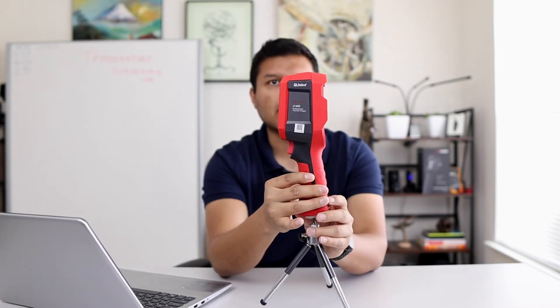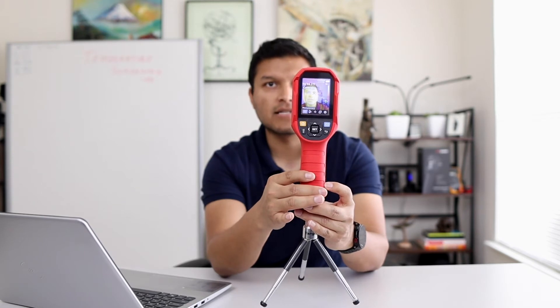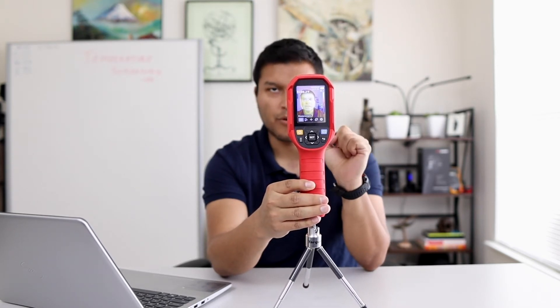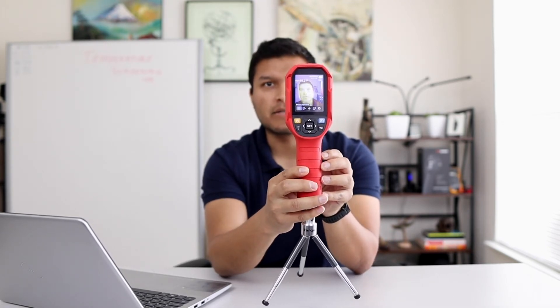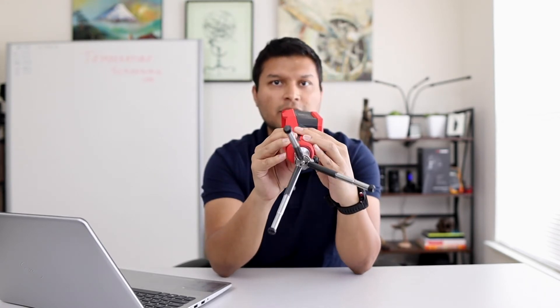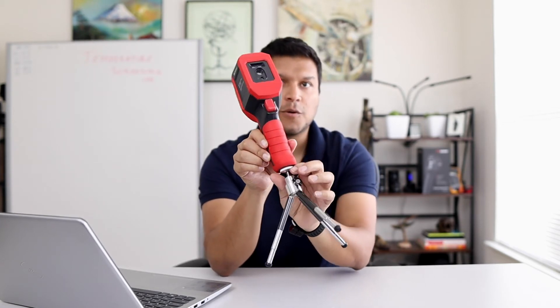Going around the unit, that same wrapping carries across. I like the rugged look this has. Notice in the back there's a nice big thermal imaging screen — a nice LCD screen. The buttons themselves are very, very simple. You do have this standard quarter-inch tripod mount. It's a very, very sturdy unit overall.